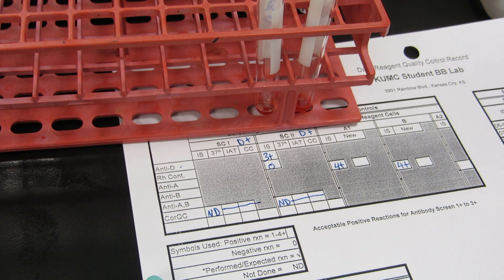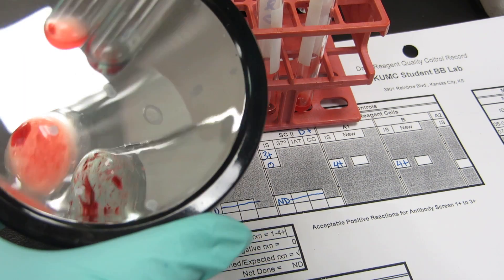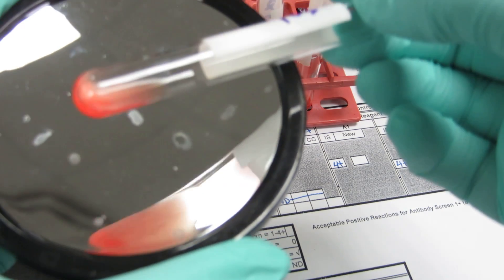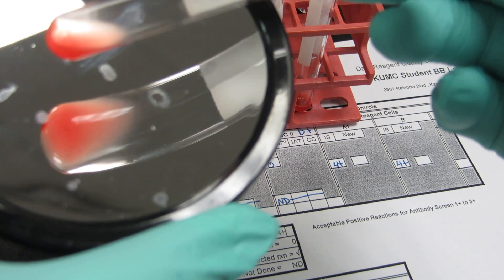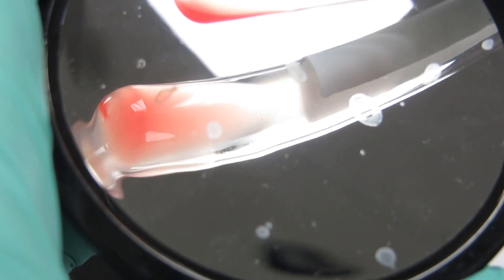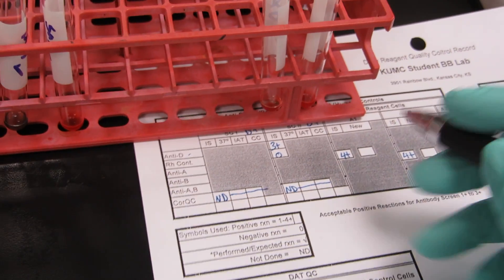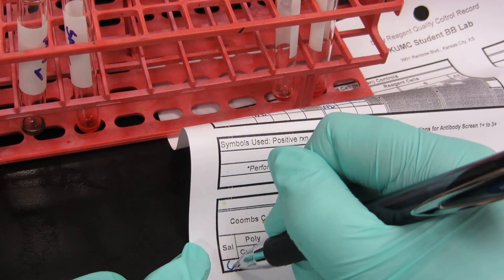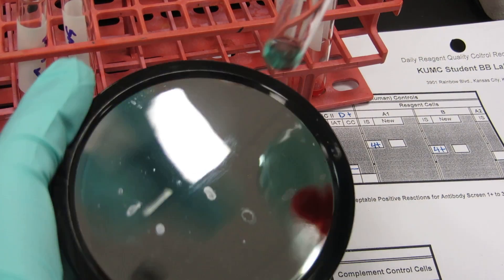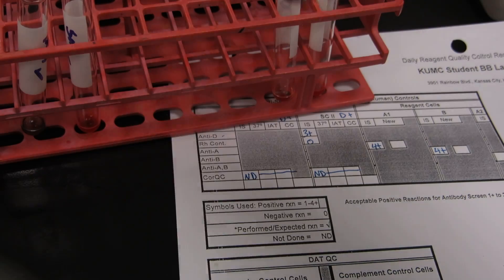Now let's look at our DAT QC. Our saline should be negative and our poly should be positive. Saline is on top — right away you see that poly came off positive, about a three plus. Our saline — it looks a little granular, but that's because those cells are sticky. Notice how a slight jiggle smoothed it all out — very uniform and smooth, so that's negative. We'll record in our DAT QC: saline was negative, poly was a three plus. Current means your current bottle, new means if you get another one out. And lastly our IgG — that's a really nice three to four plus.